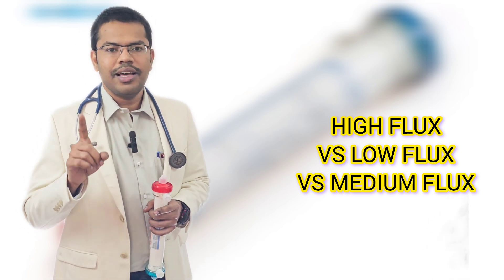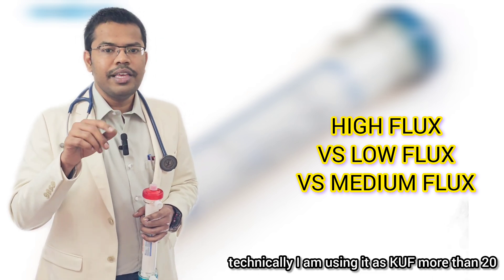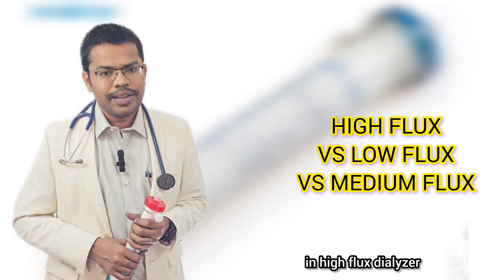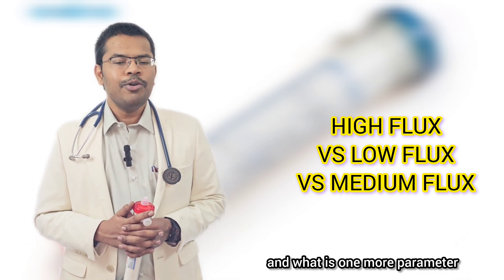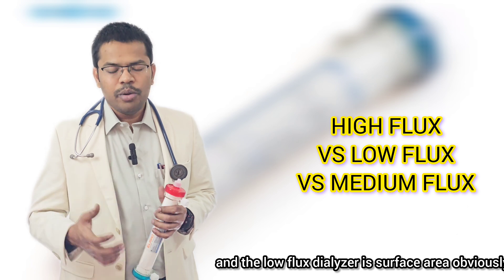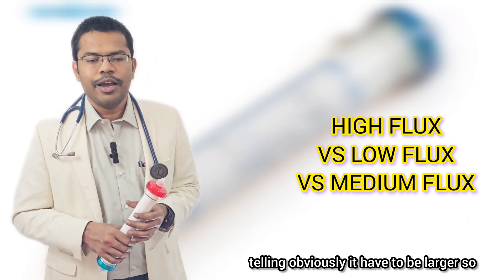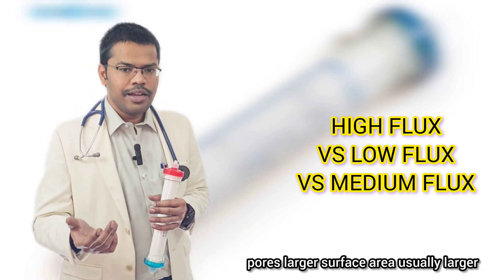In summary: pore size is the predominant decider of low flux versus high flux. Bigger pore size means greater water removal, technically expressed as KUF more than 20. For molecular weight clearance, uremic toxin clearance is better in high flux dialyzers. The specific values will be discussed in subsequent episodes. An additional parameter that differentiates high flux and low flux dialyzers is surface area.